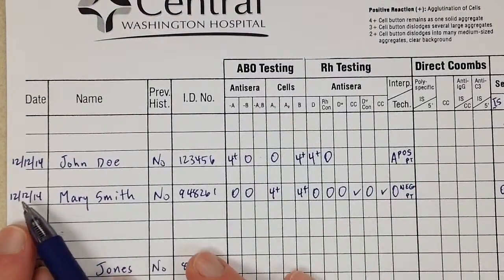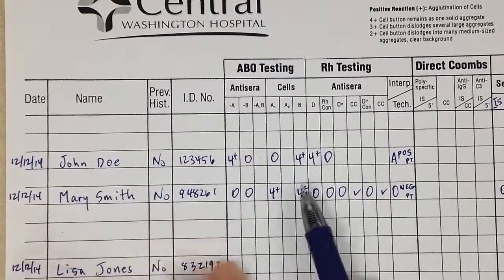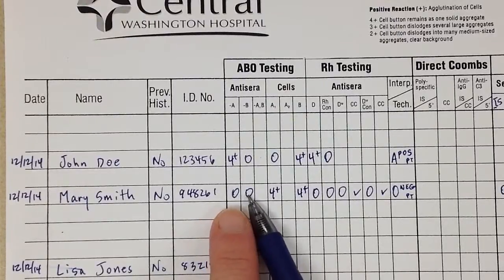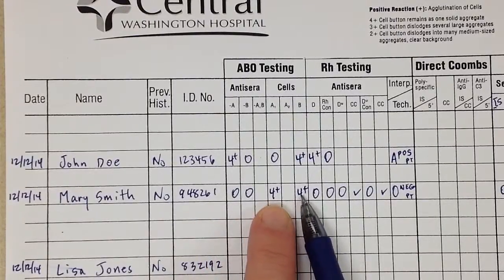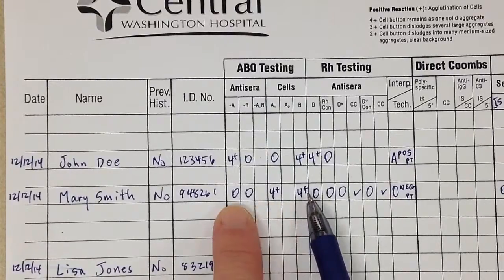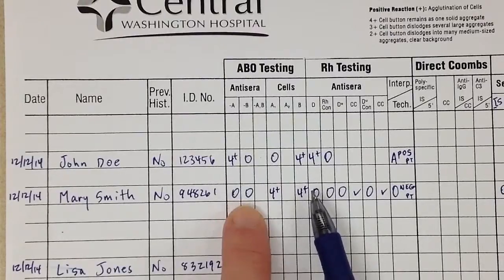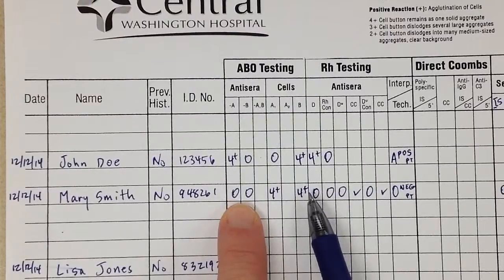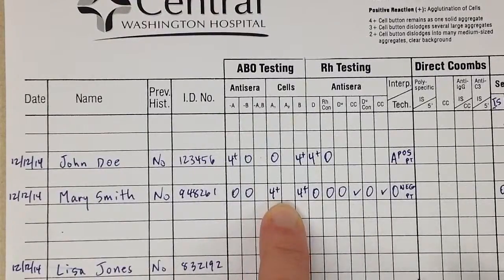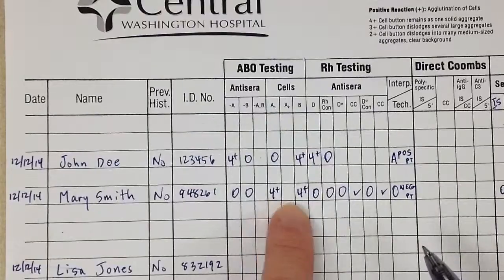The next patient is Mary Smith. We have the date, name, no history, and ID number. Mary forward types as an O and reverse types as an O as well. If you don't have the antigens on your cells, that means you will have the antibodies to those antigens. Everything checks out - she is an O patient.